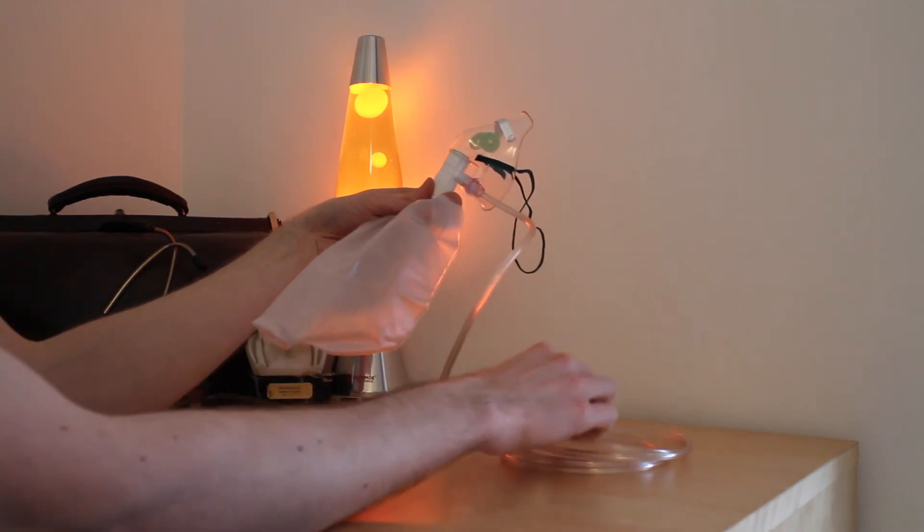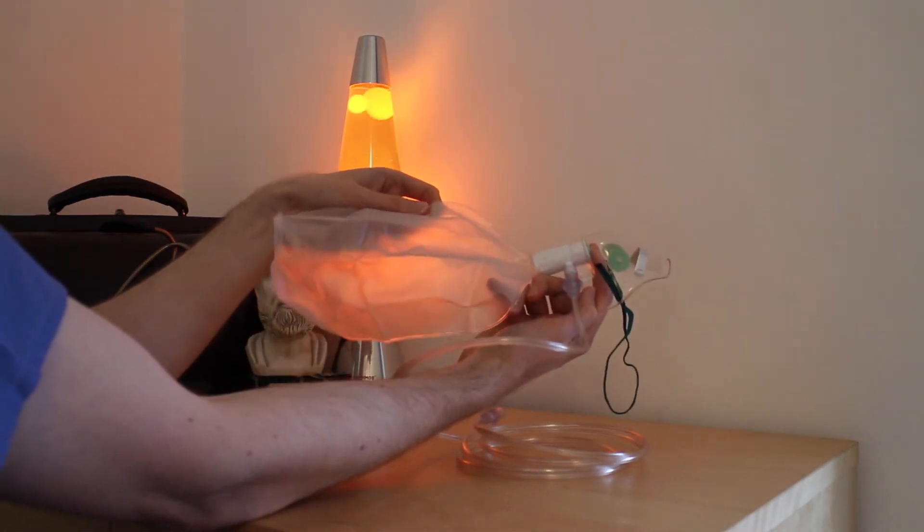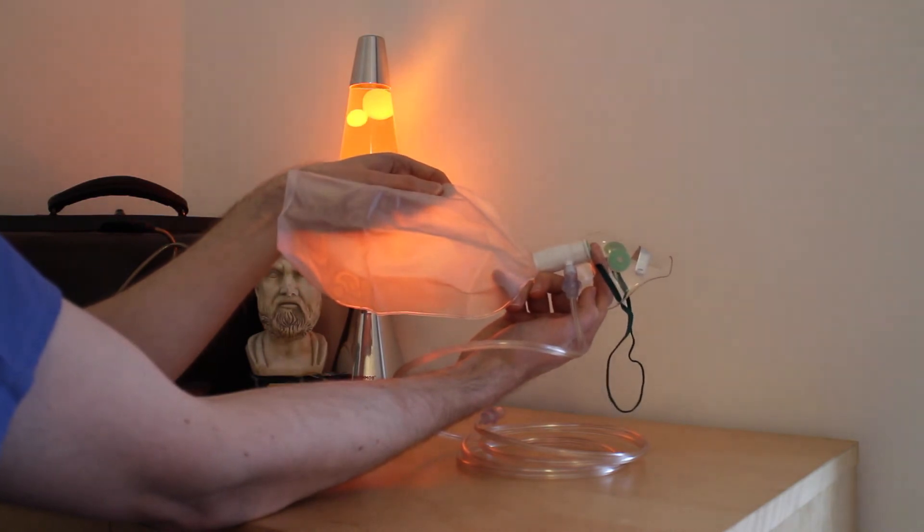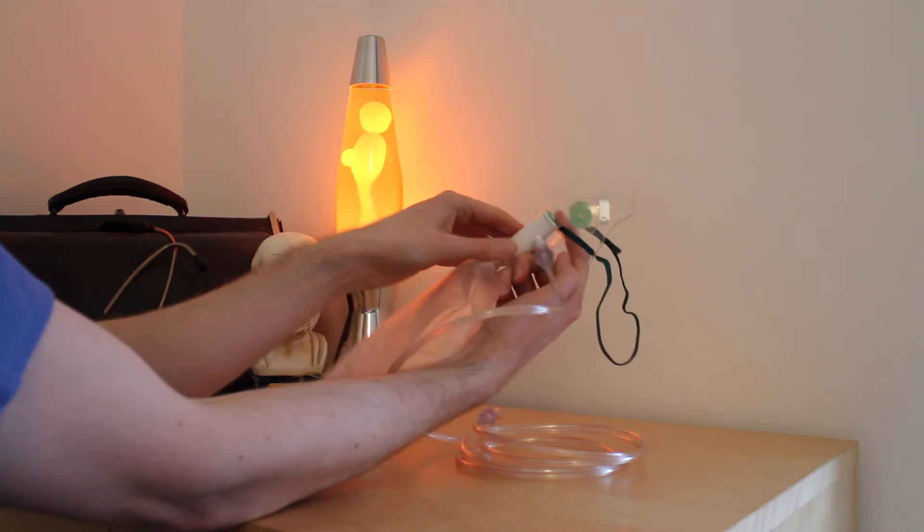Once connected to the oxygen supply, it is important to insert your finger against the valve on the inside of the mask. This will allow the bag to fill up, creating a reservoir of oxygen to maximize oxygen delivery.